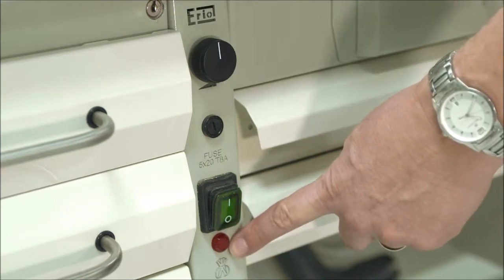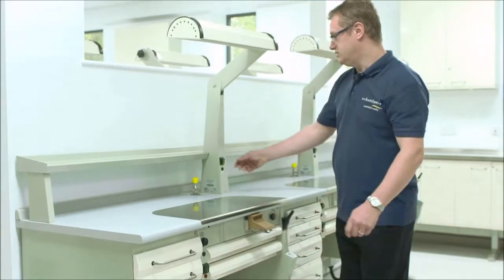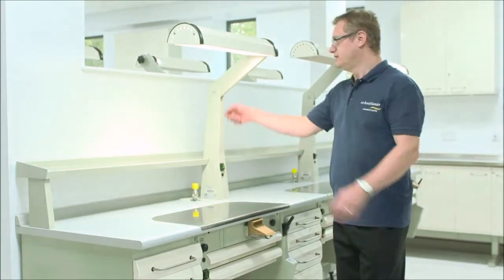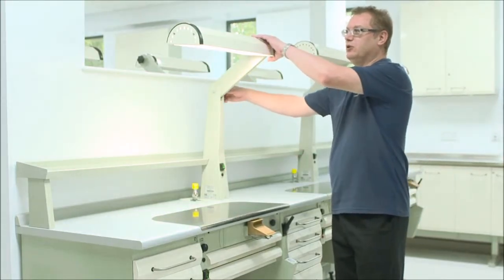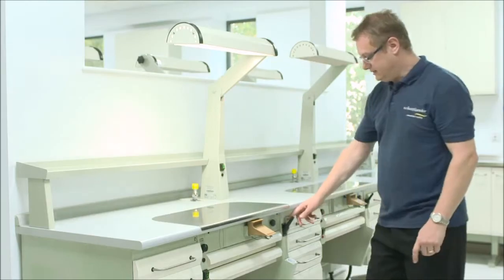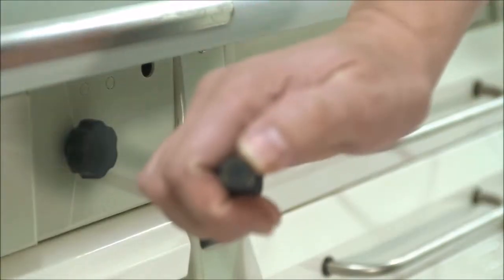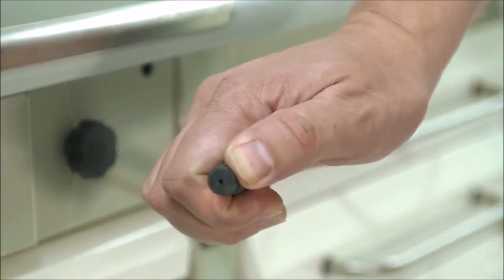There's a red filter full bag light below. The light is controlled by the switch here and there's adjustment by turning the black knob here. To the right here is the air line. You deflect to release the air and release to cut it off.